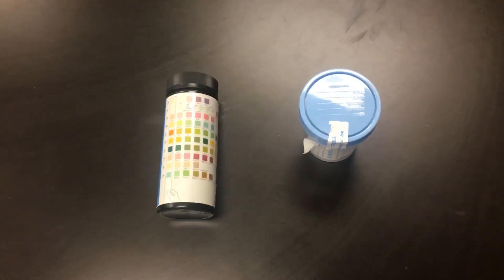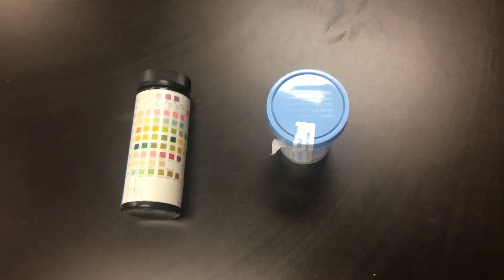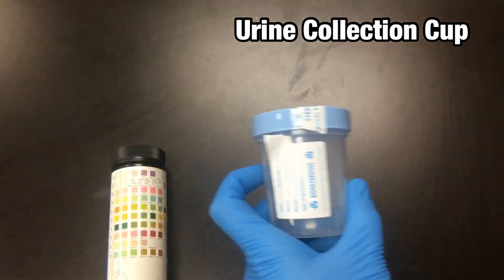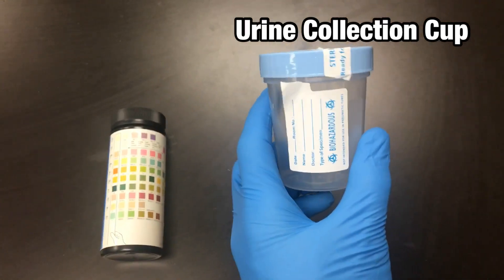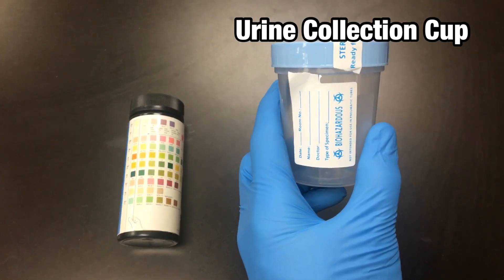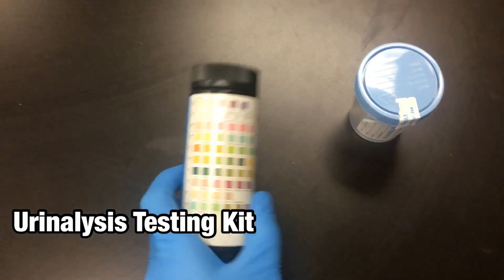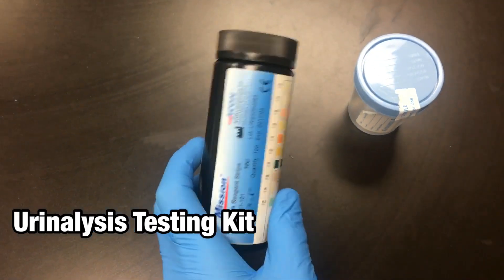What you'll need for this test is a urine container to collect the urine, and then a urine analysis testing kit.